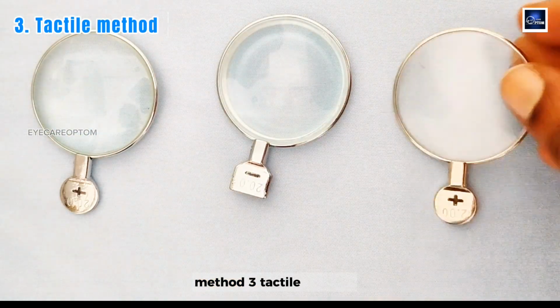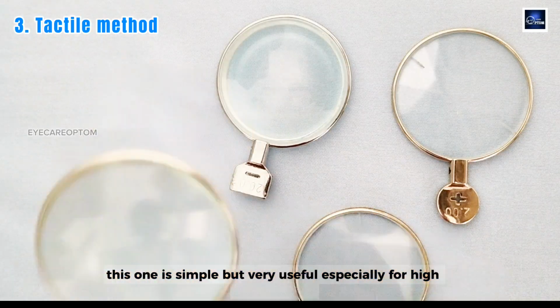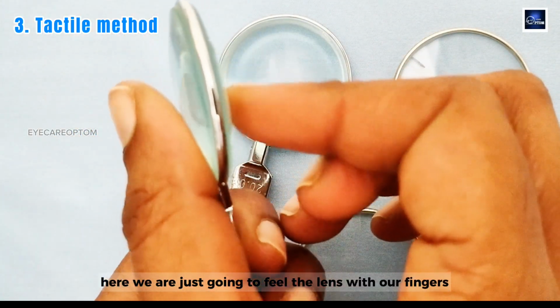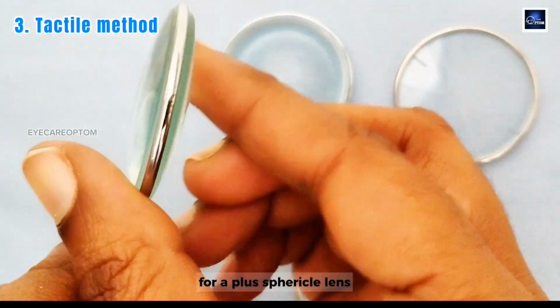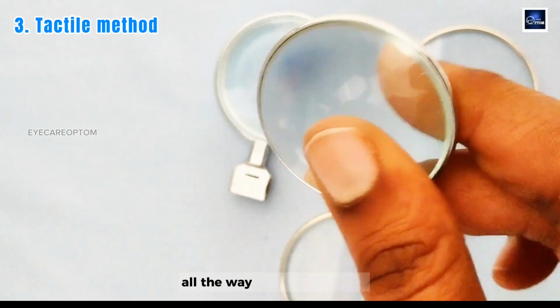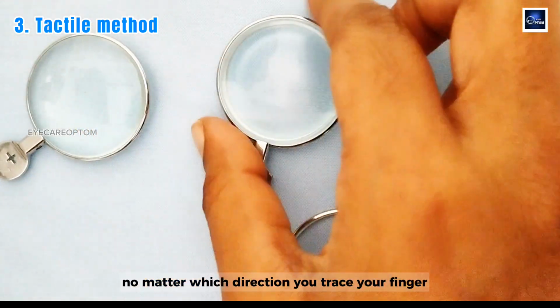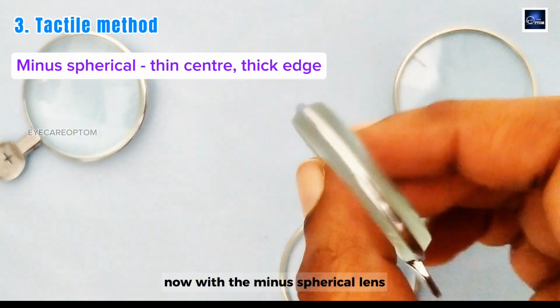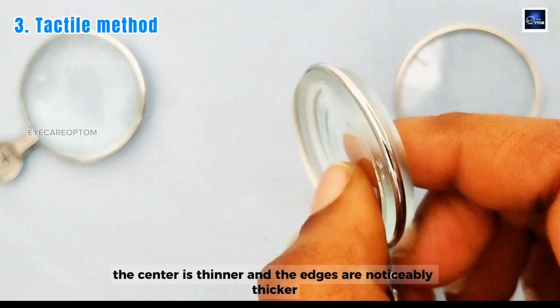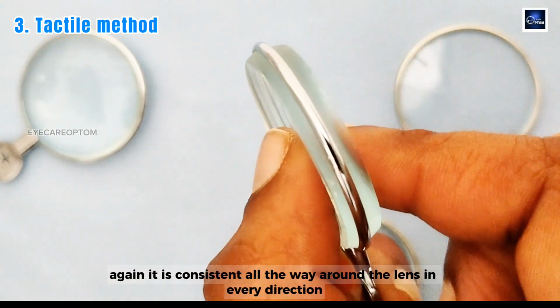Method 3, tactile method. This one is simple but very useful, especially for high power lenses. Here we are just going to feel the lens with our fingers. For a plus spherical lens, notice the center is thicker and it's thinner at the edges all the way around uniformly, no matter which direction you trace your finger. Now with the minus spherical lens, feel the center, it's thinner and the edges are noticeably thicker. Again, it is consistent all the way around the lens in every direction.